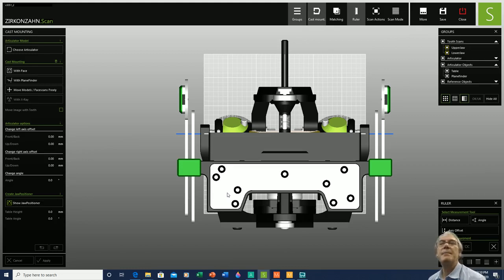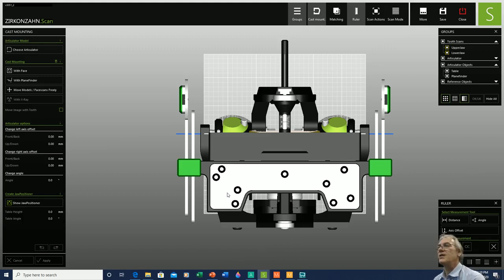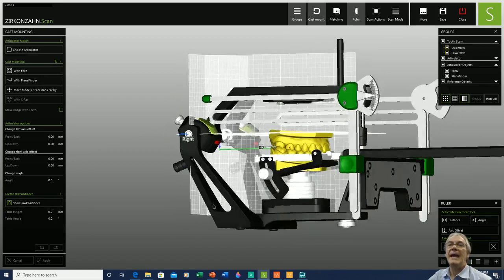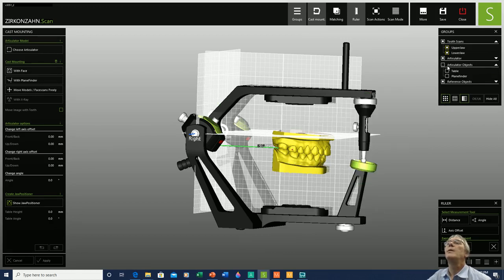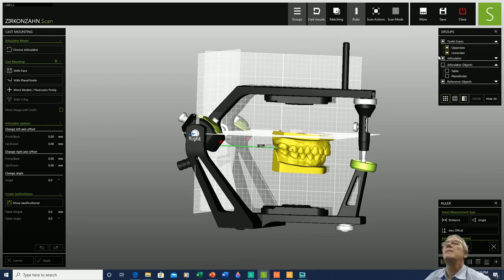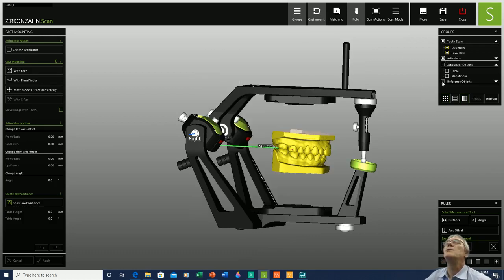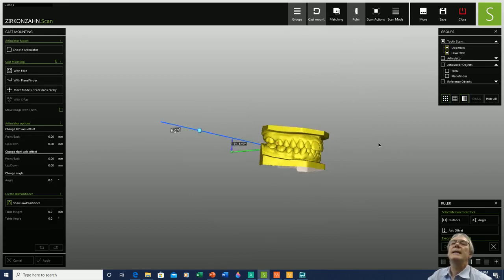Welcome to my gypsum room — in the digital world, this is known as our scan software. This is basically where, as in our gypsum room, we set up the models in the articulator. It's the area where we prepare and trim the models, get them ready, and mount them in the articulator.